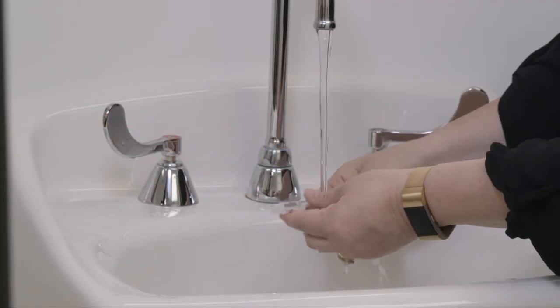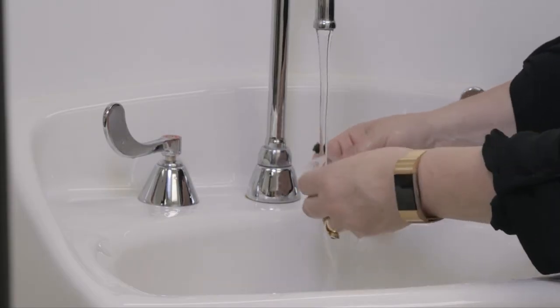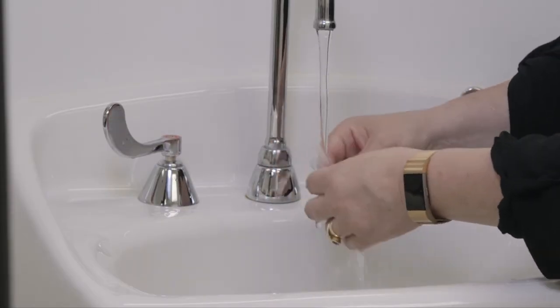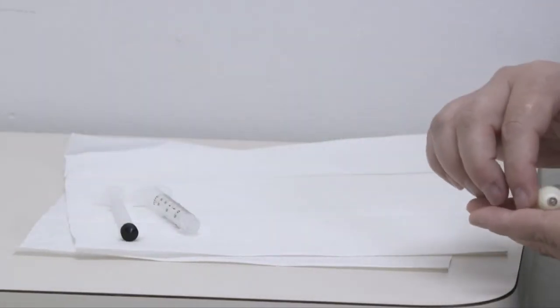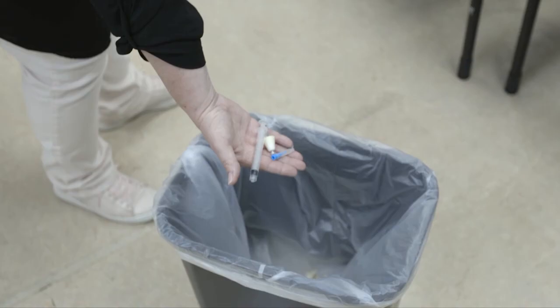The atomizer kit may be used more than once. After using it, rinse it in warm water and lay it on a paper towel to dry. Please discard and use a new kit when it begins to show signs of wear and or when you are no longer able to read the numbers on the syringe.